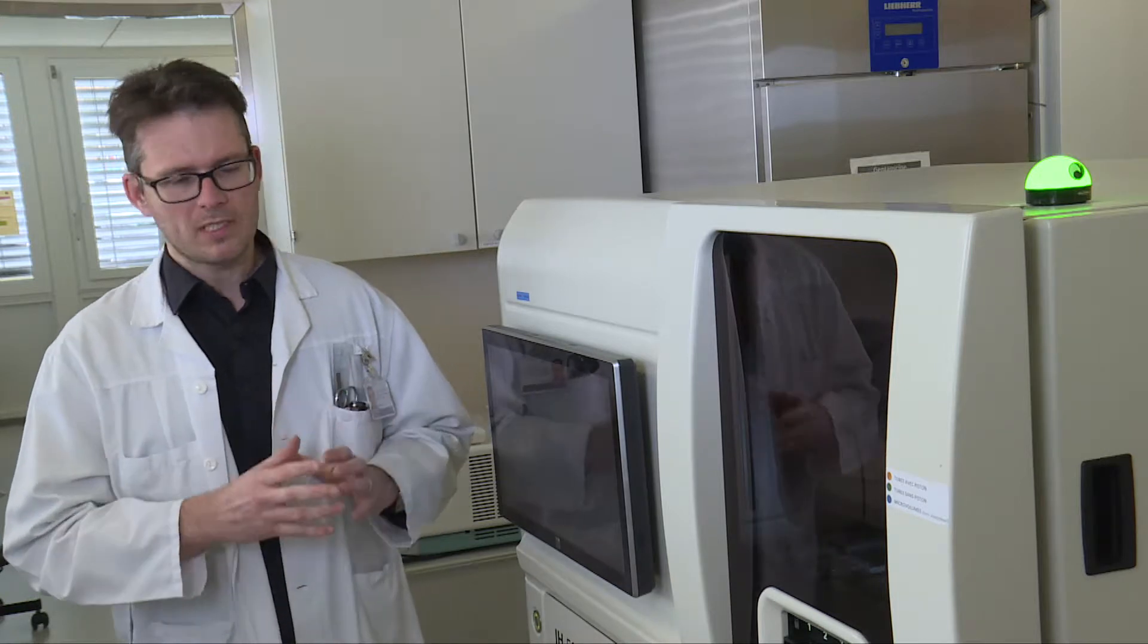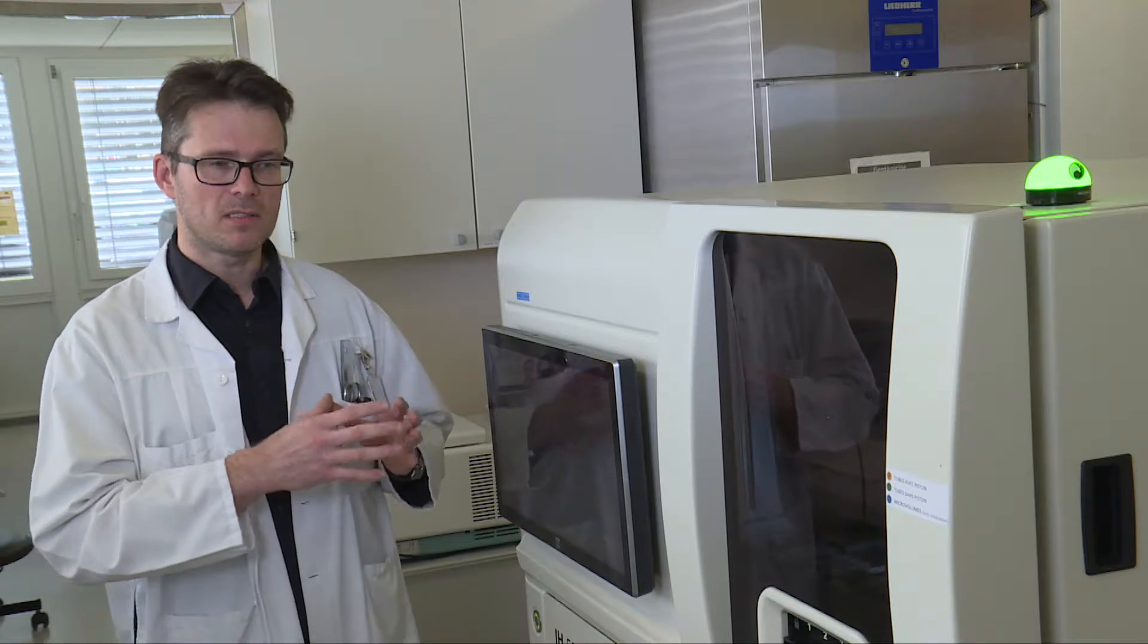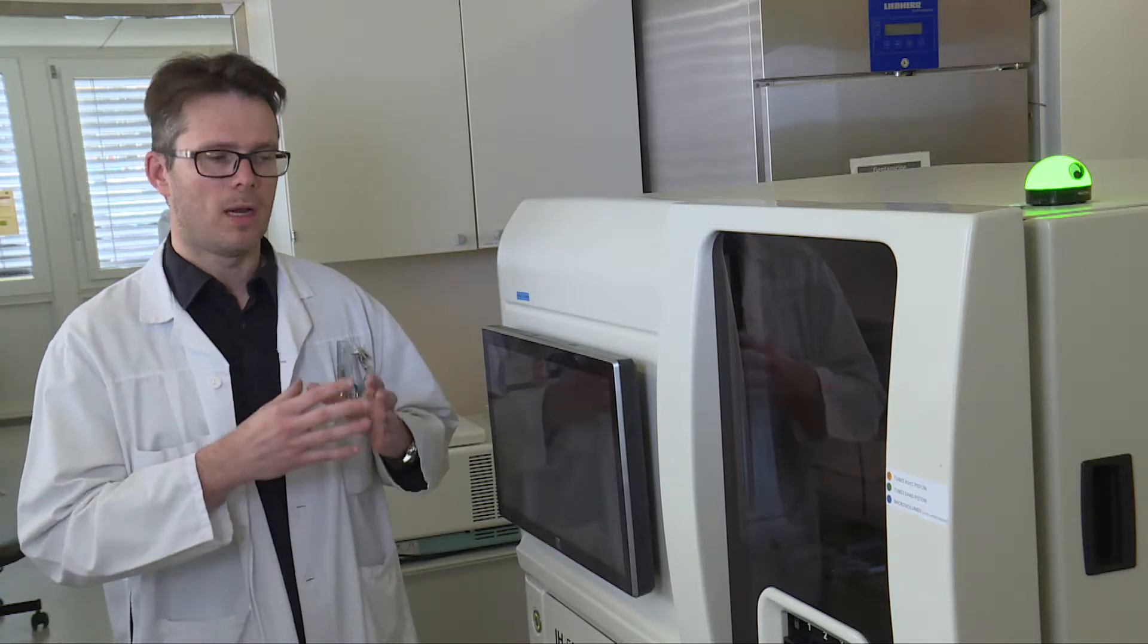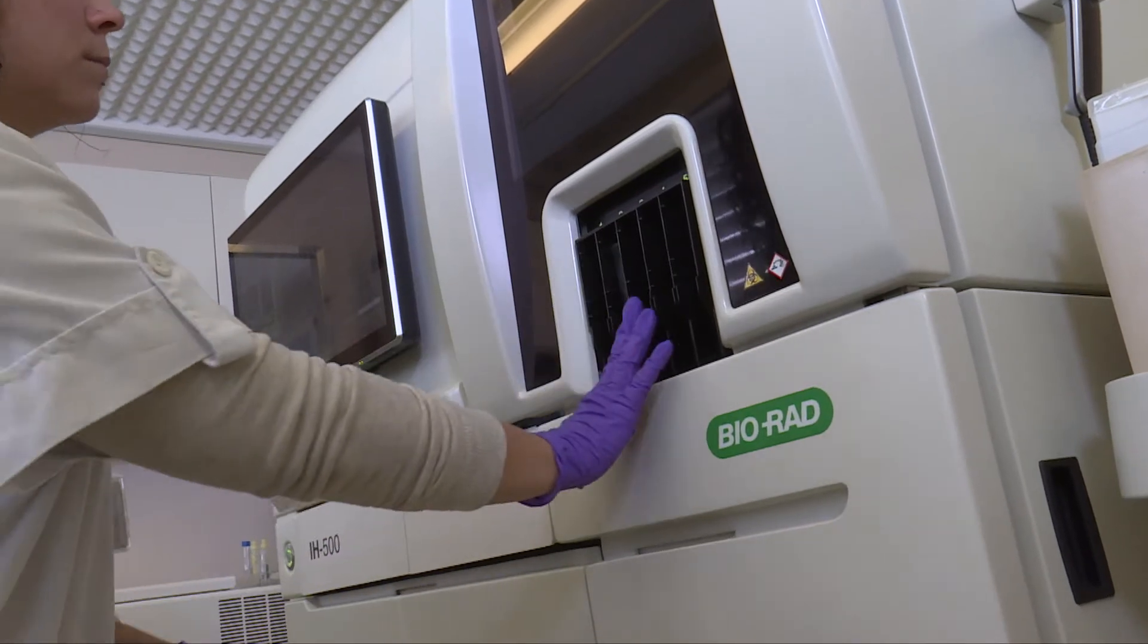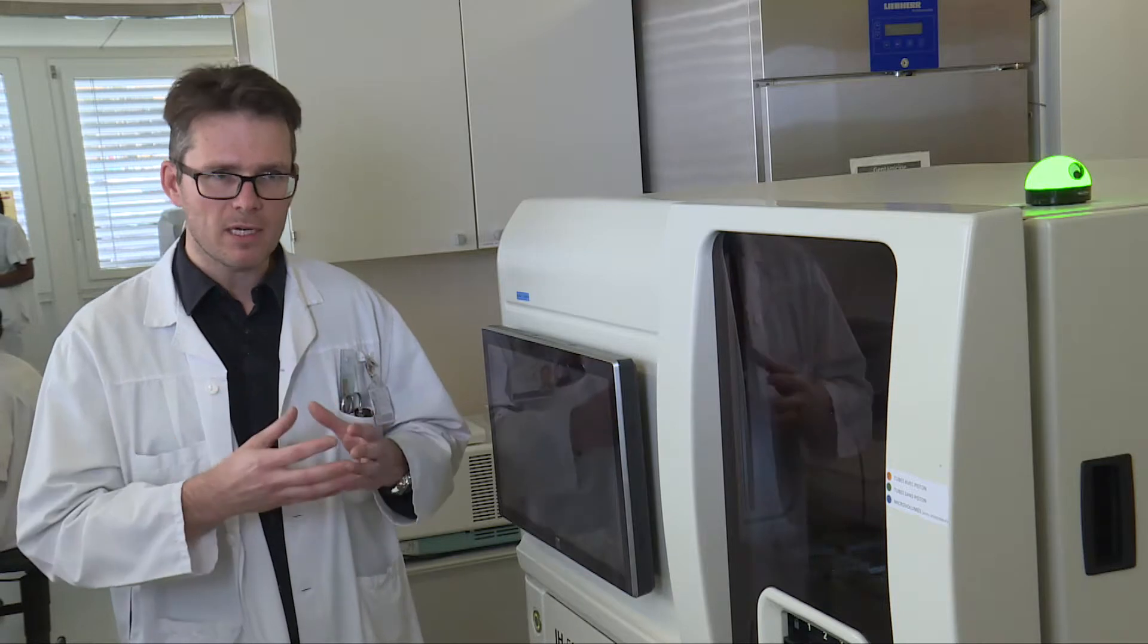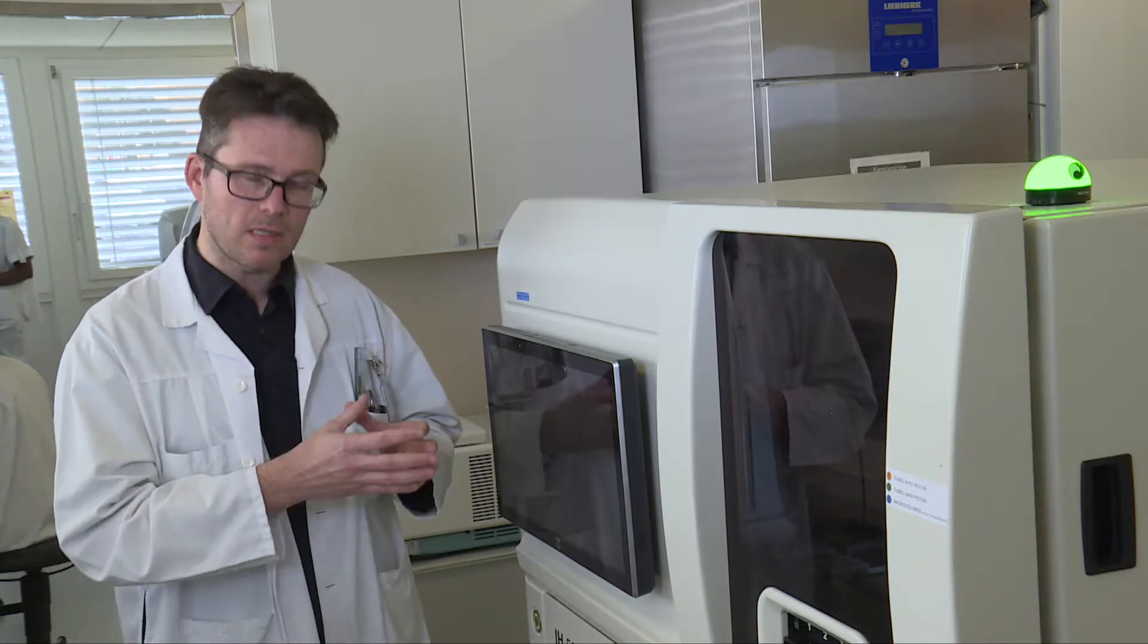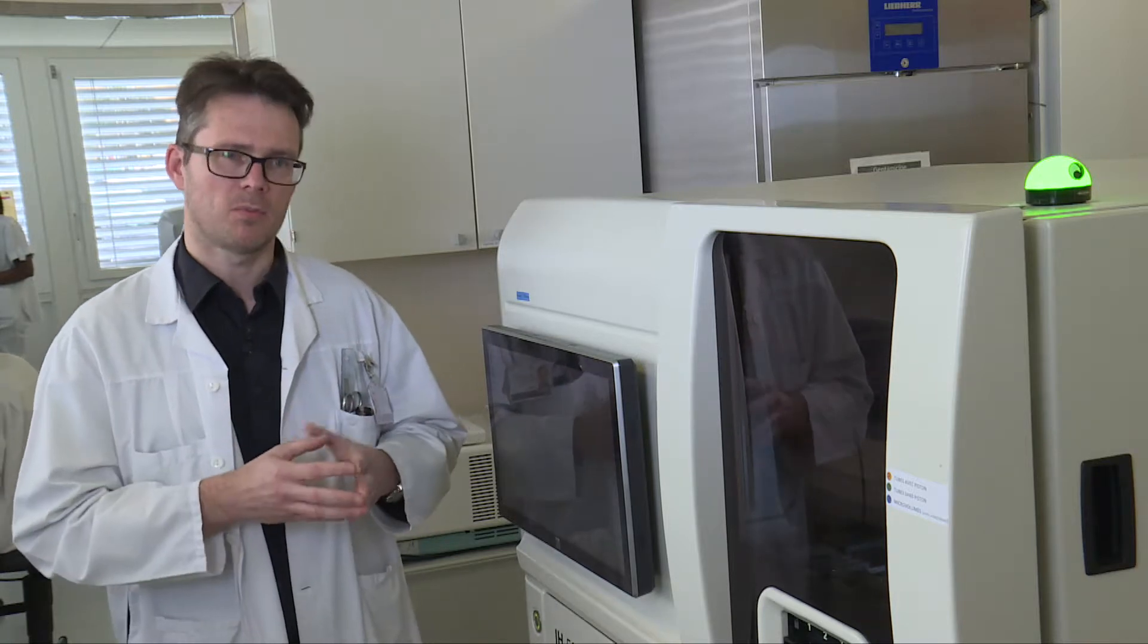Within our organization, the advantage of this instrument compared to the old solution is simplification. Previously, the technician frequently had to stay by the instrument to operate it, but without creating any added value. Now the technician loads the samples, loads any reagents required and starts the analysis. They only return to the instrument to check the results and if their specific expertise is required. This is very important. And it really is, because of this instrument, that we have been able to simplify the process and make optimum use of the technician's expertise.